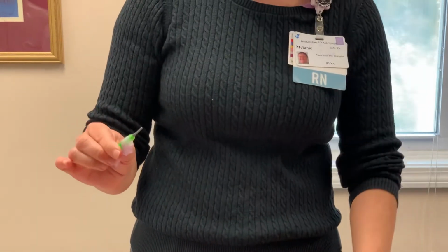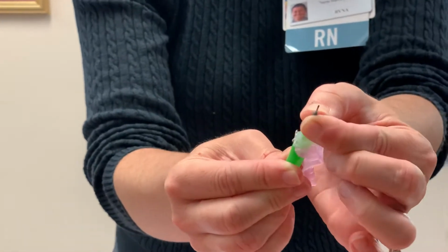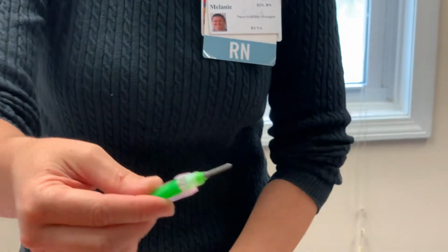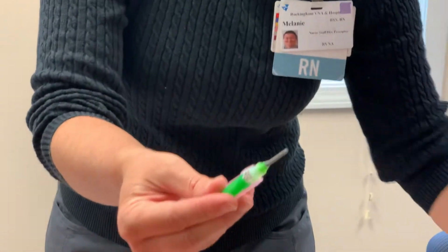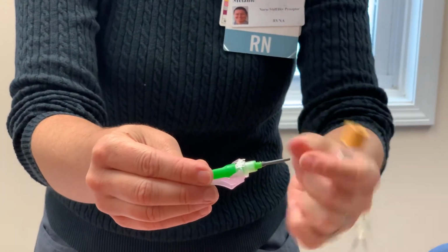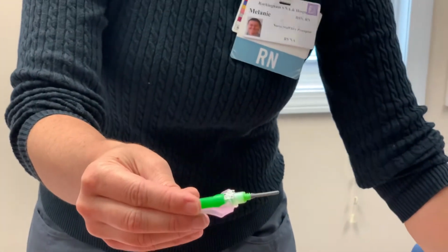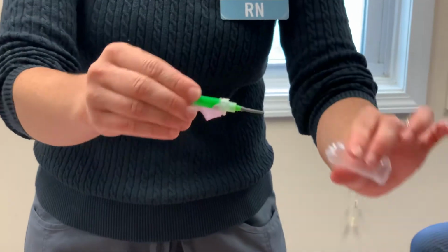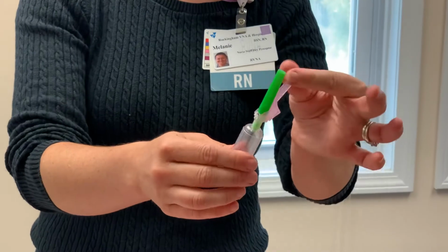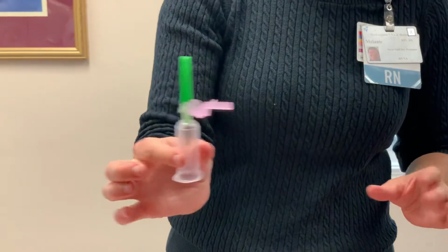I'm going to twist this off. Keep in mind too that this is also a needle. So you see that there. So this is considered a sharps even at this level. And the way that works is that when you get your tube using the vacutainer, which I'll show in a minute, the sleeve pulls back, and that's how it allows the blood to enter the tube. So just keep that in mind. So now I'm going to connect my vacutainer, and this is how you would put it together. This is your safety, and this is how you would assemble that equipment.